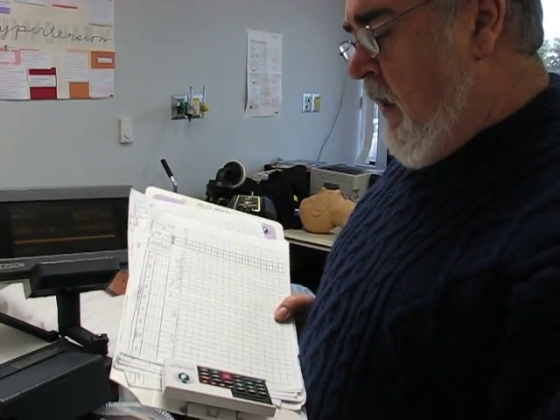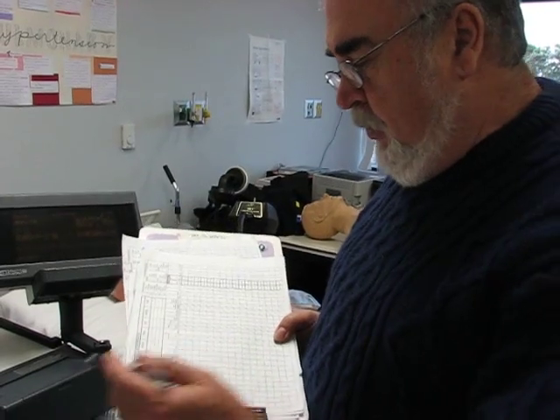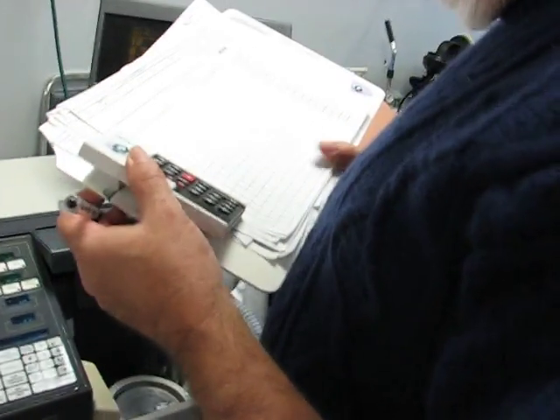The whole idea of doing a ventilator check is that you're documenting what settings are on the ventilator for a medical record. So if you come in and you copy what's on the board, that's not doing a ventilator check. That would be unacceptable. I have to see that you're looking at the actual machine and not at what's written on the board. Okay, so here's how we go.